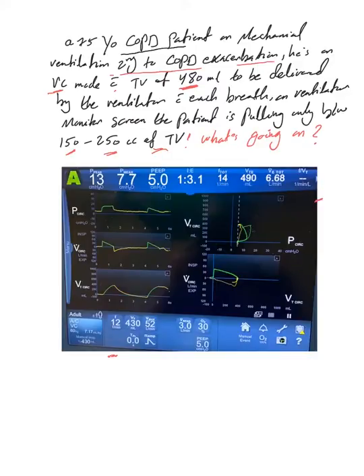What do I mean by this? See this example here. This is a patient on volume control, and see, this is the tidal volume the patient's supposed to get with every breath. This is what's set by the ventilator, and this is the actual tidal volume the patient is receiving or pulling.